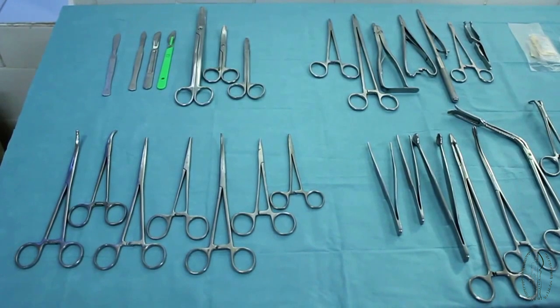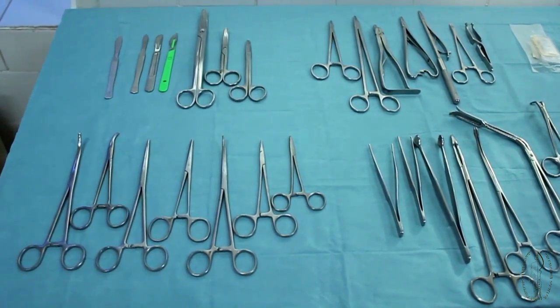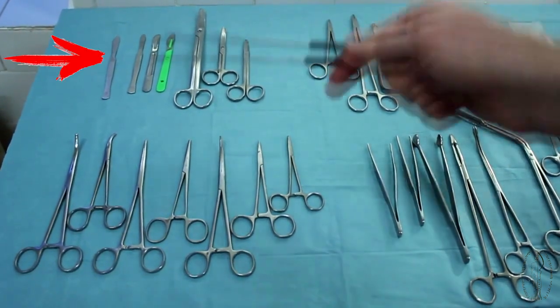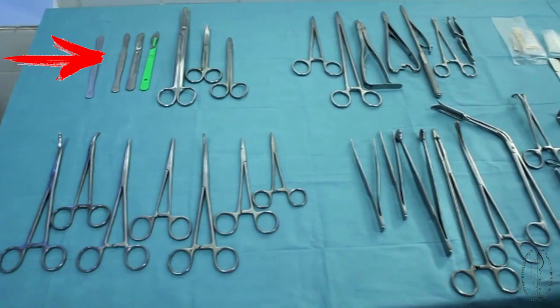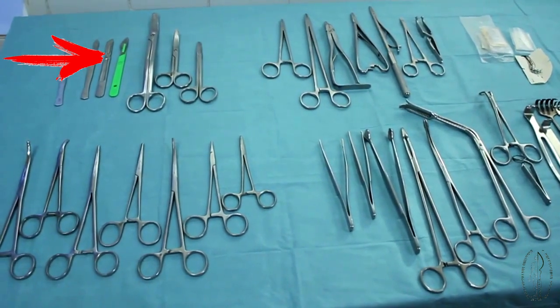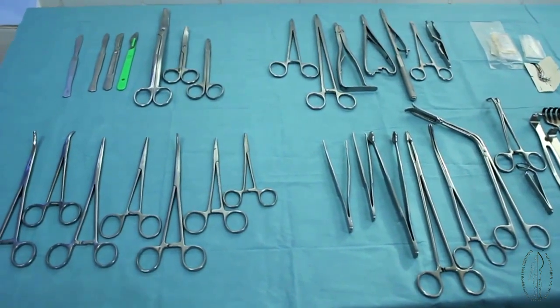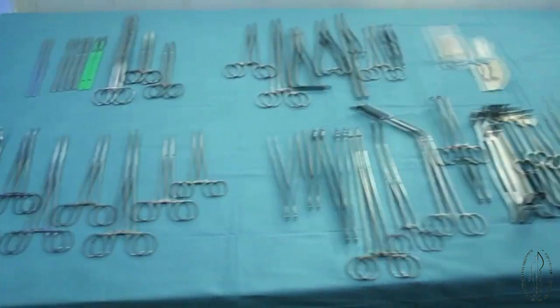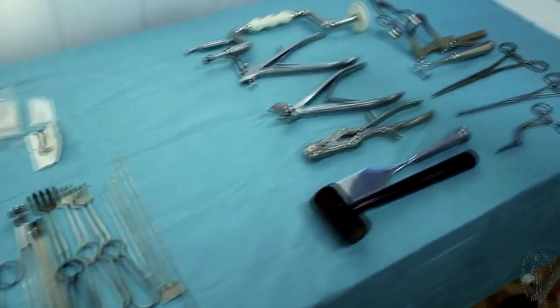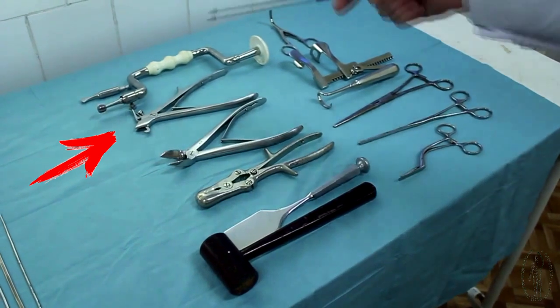All surgical instruments can be divided into two large groups: common surgical instruments, which are used in any surgical operation, and special surgical instruments, which are used in certain operations.